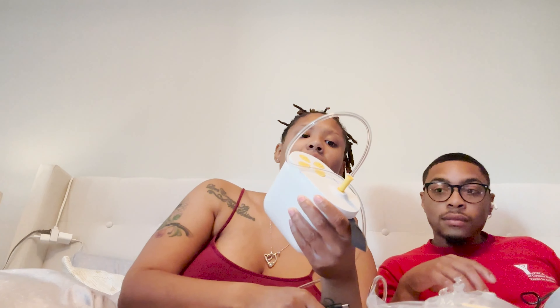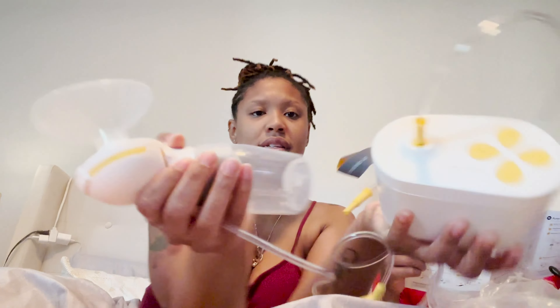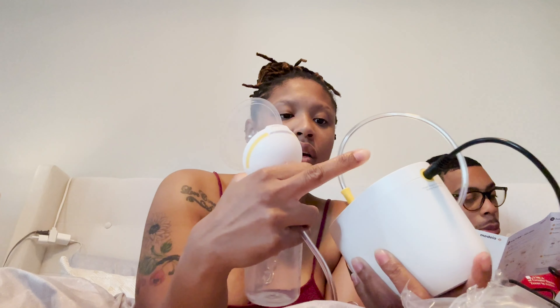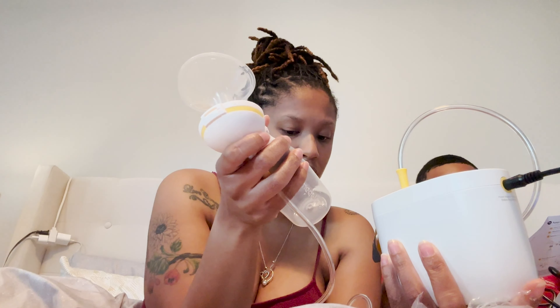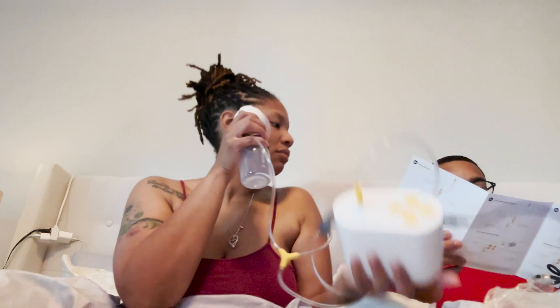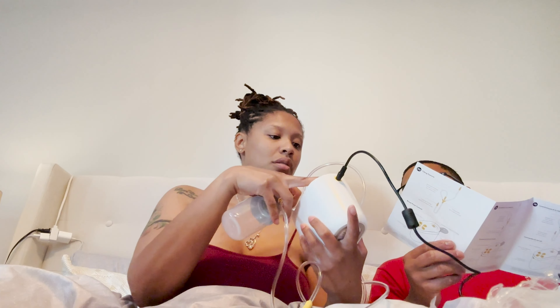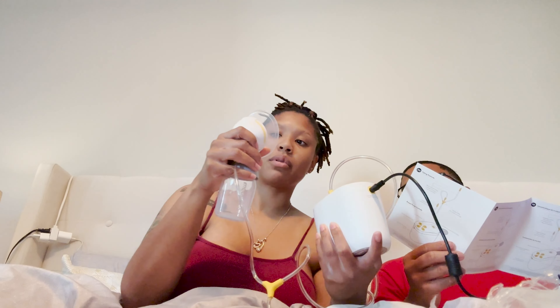I don't like this — this is giving IV from the hospital. But it's supposed to be portable and easy to manage, okay? So look you guys, this is what it looks like all hooked up. He's got it on the thing. I hear it — oh, it's going! Yep, the inside is going.